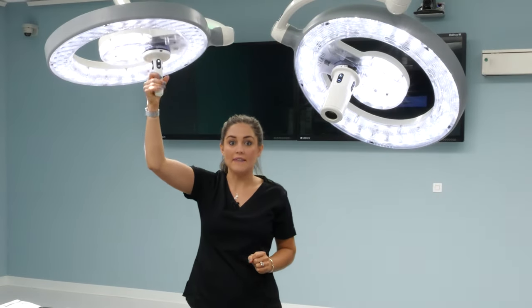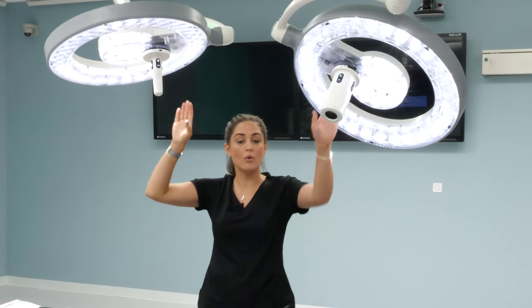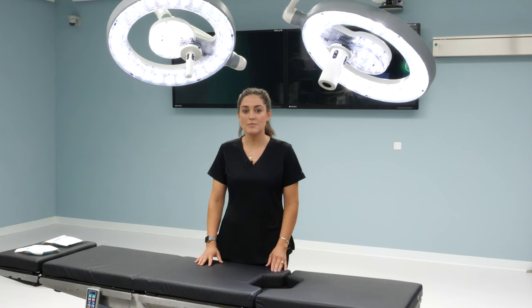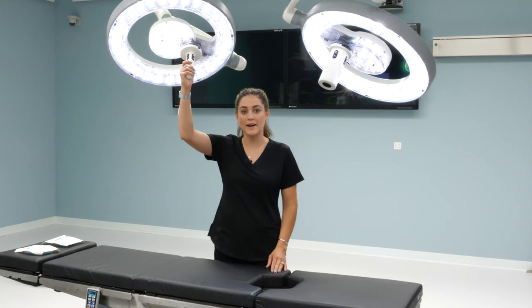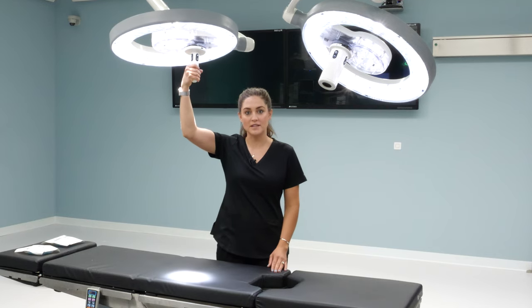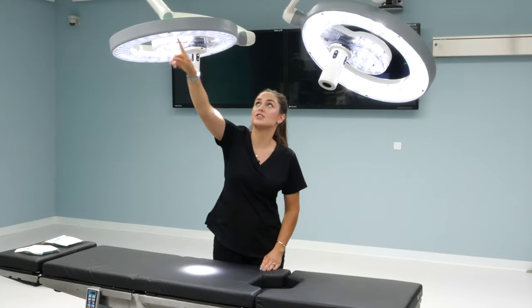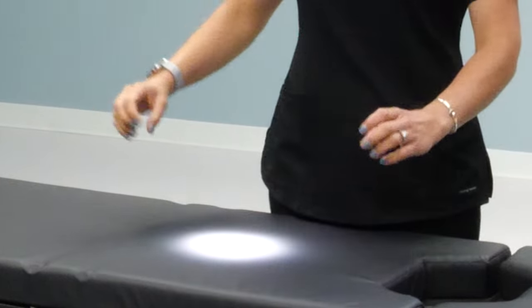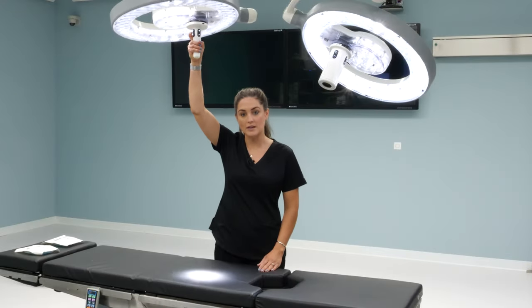On the sterile control — whether it's your in-light handle or your camera — you can do a slight quarter turn of the light head to change your spot size or focus. As you may have noticed, the intensity automatically adjusts when you adjust the spot size. This is our auto intensity feature. Steris has sensors built in all the way around the light head to automatically adjust the light intensity as you go from a larger to a smaller spot, as well as when raising and lowering the light.